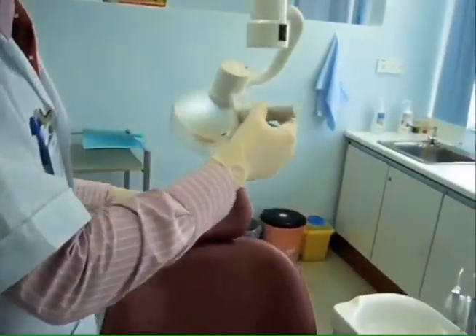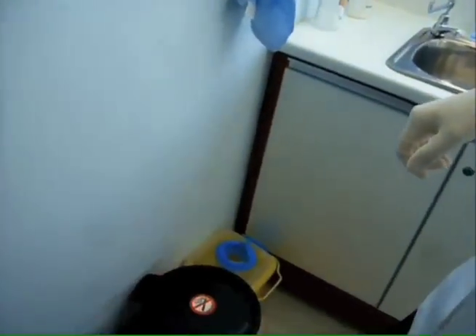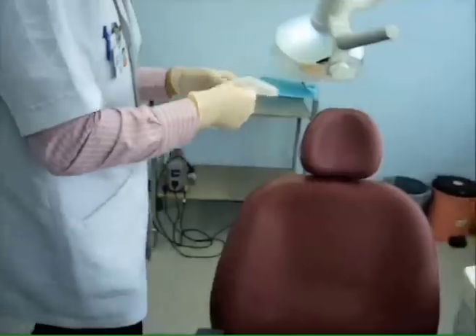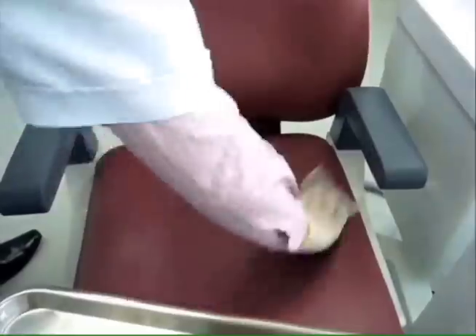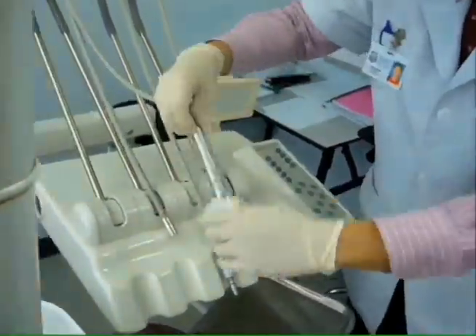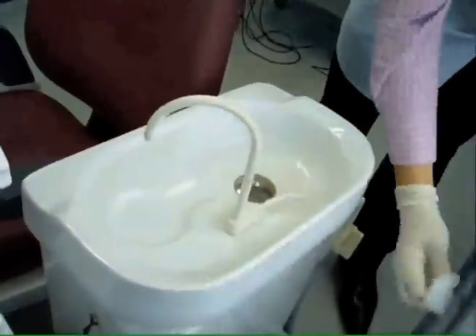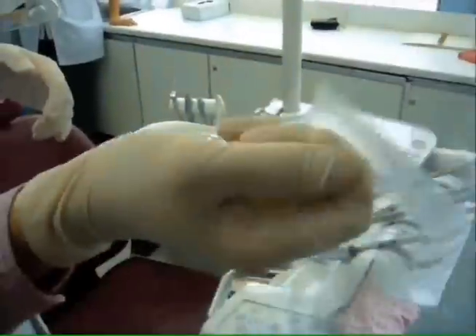Plastic sheets, disposable sleeves and suction tips are removed and discarded appropriately into the waste bin. With the help of disinfectant wipes, thoroughly clean all surfaces of the dental chair including the headrest, backrest, dental lamp with its handle, tray, control unit and its attachments, the spittoon, suction unit and the three-way air syringe. Upon completion, cover the surfaces with disposable covers.